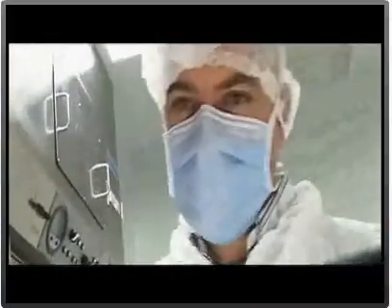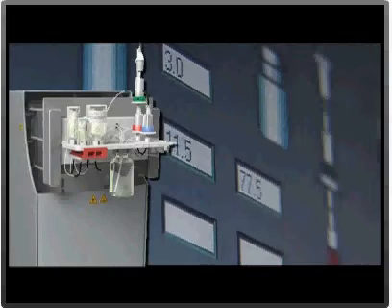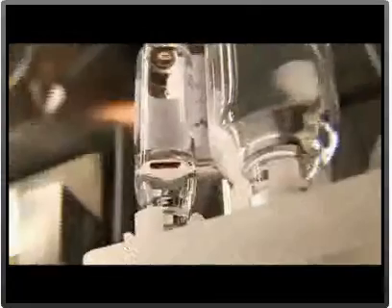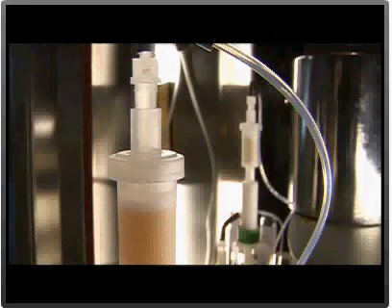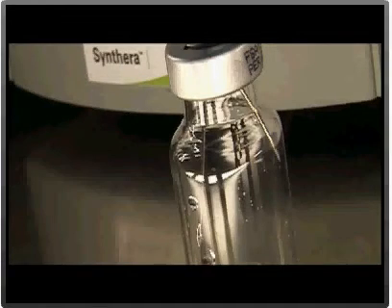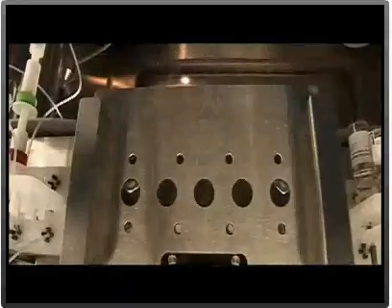The operation of the Synthera is based on the use of the unique disposable integrated fluidic processor system, IFP. The Synthera synthesis module is a truly multi-run synthesis device. By removing a used IFP, operators can immediately put in a new one for a new run, very quickly after the first run, as all radioactive waste has already been removed and contained with the IFP.